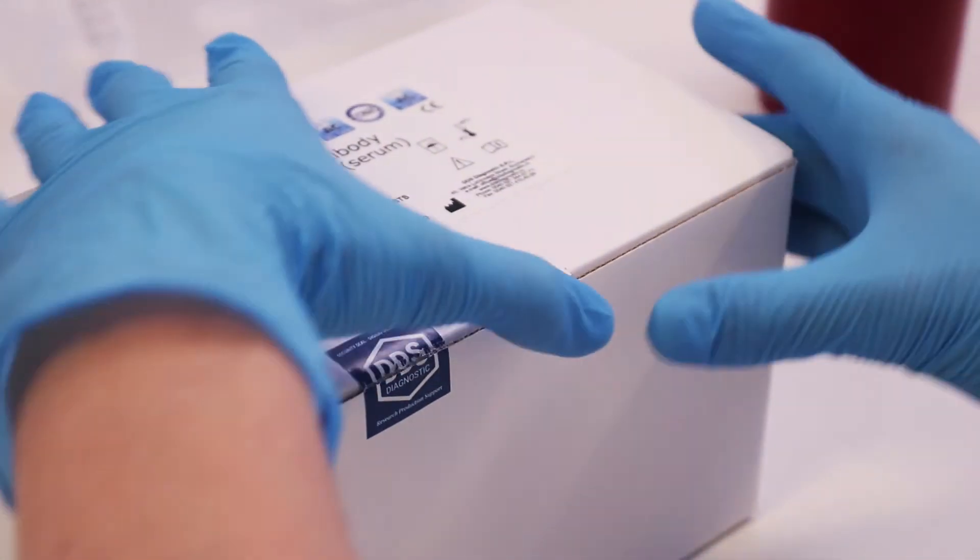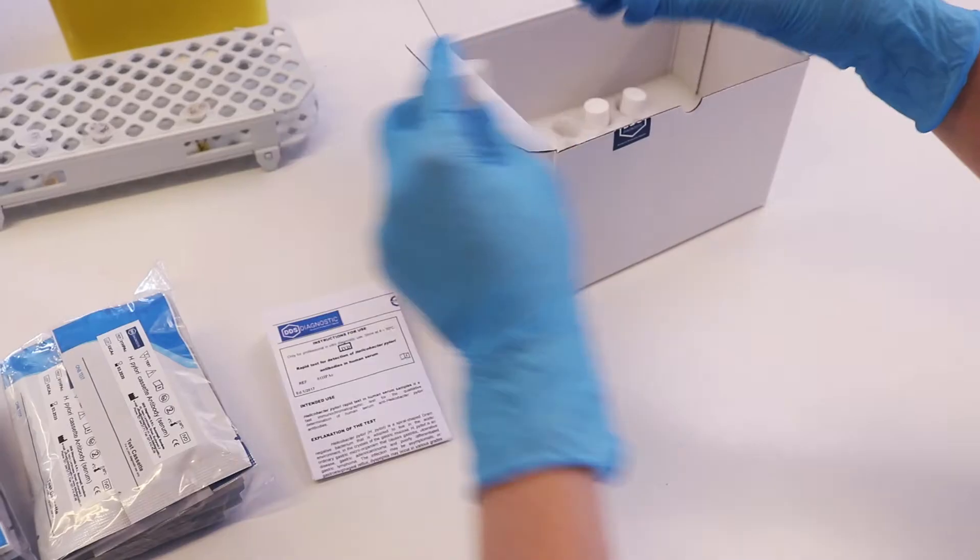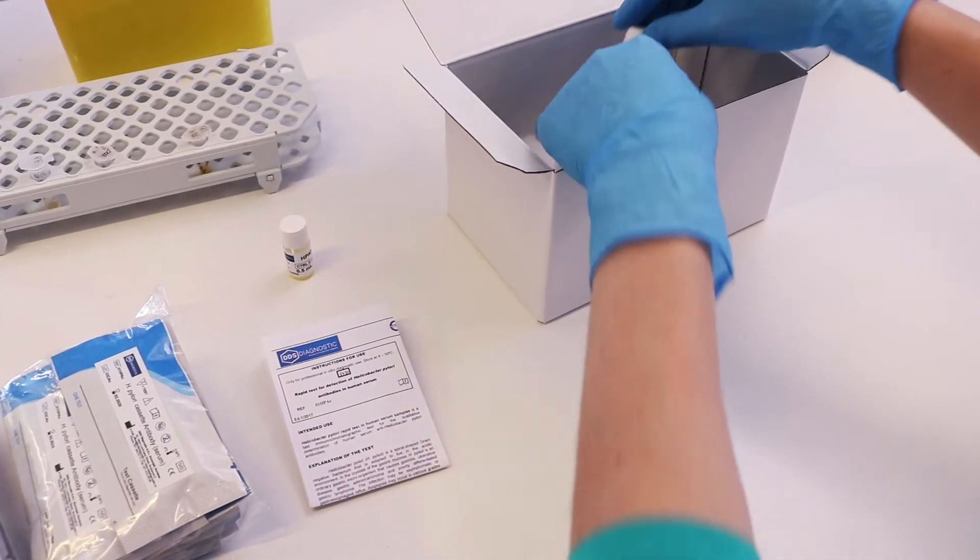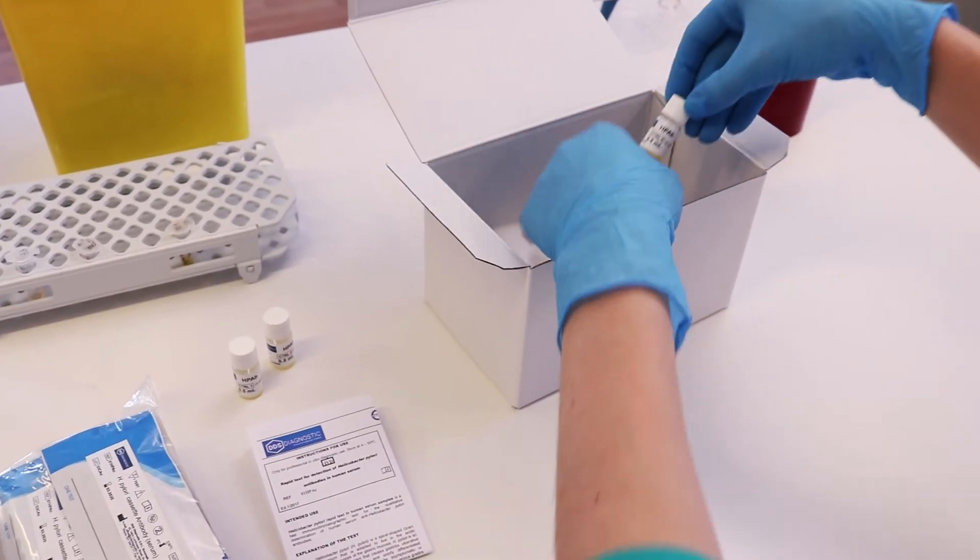Each kit contains instructions, test devices, 3-level control serum: 13, 20, 40 micrograms per milliliter.